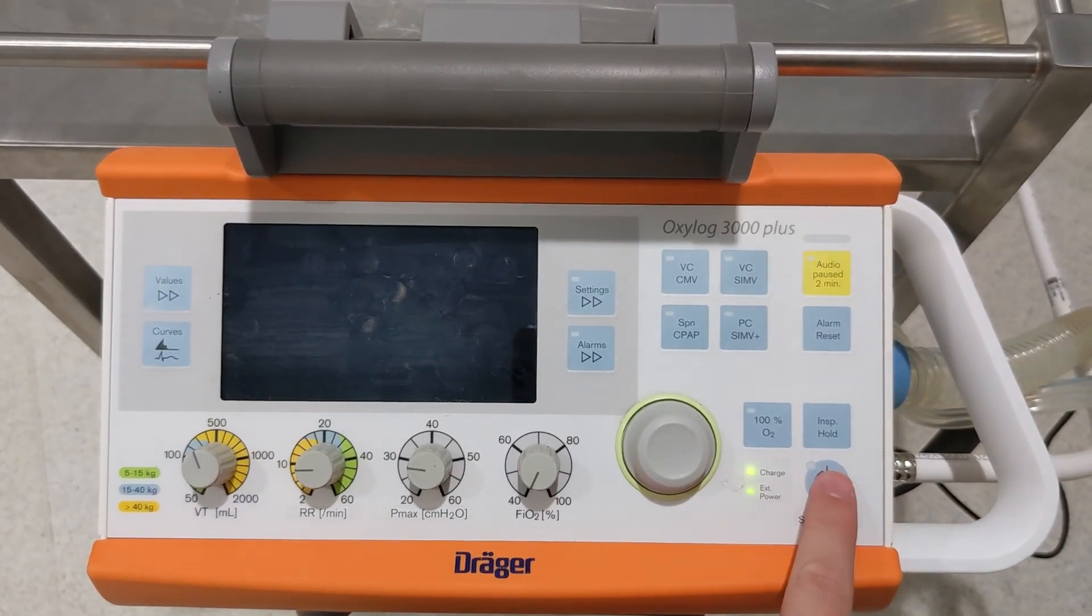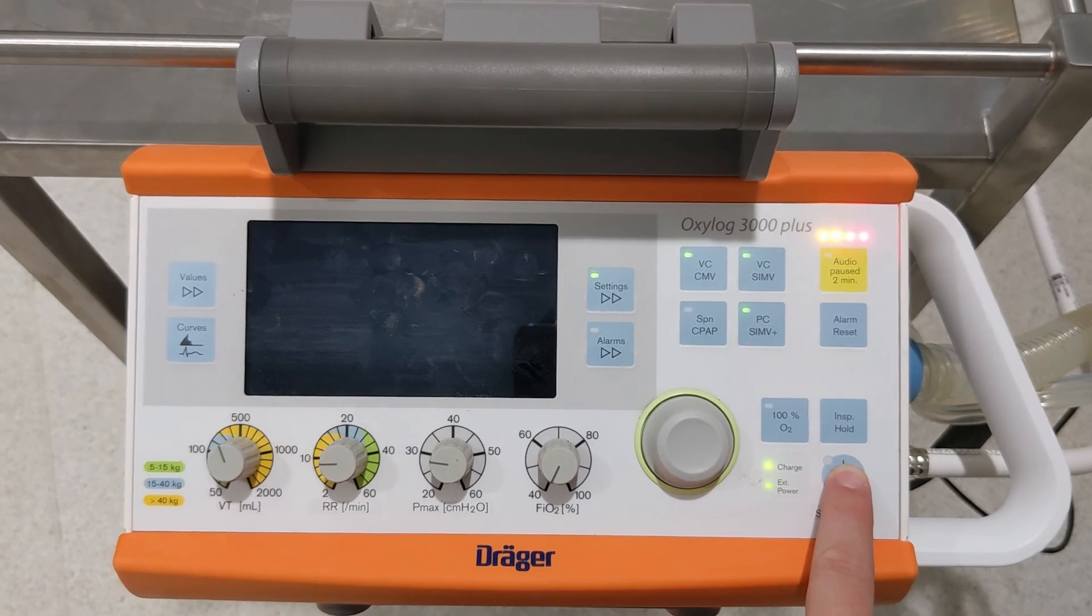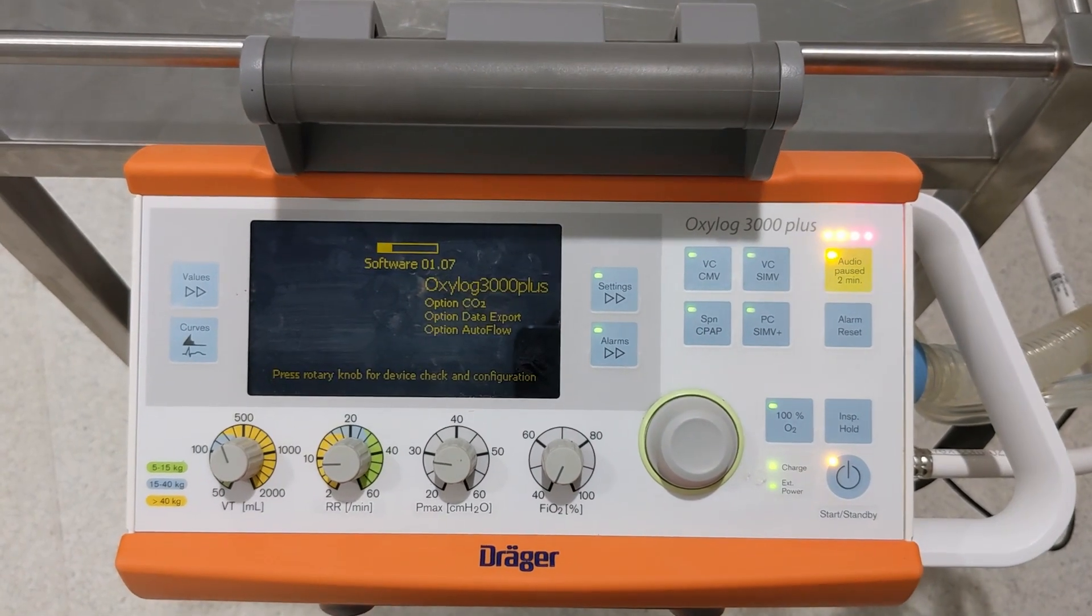Press the on button on the machine. It will make some beeping sounds and then do a very quick self-check.